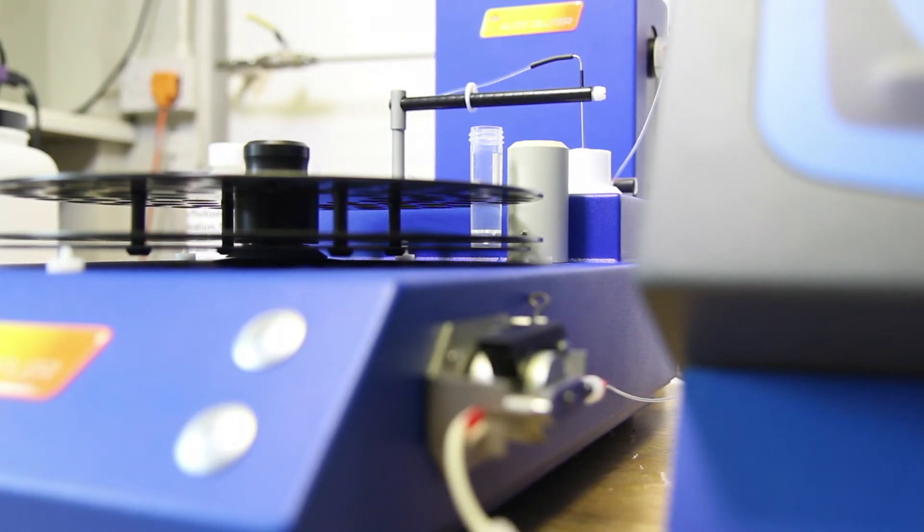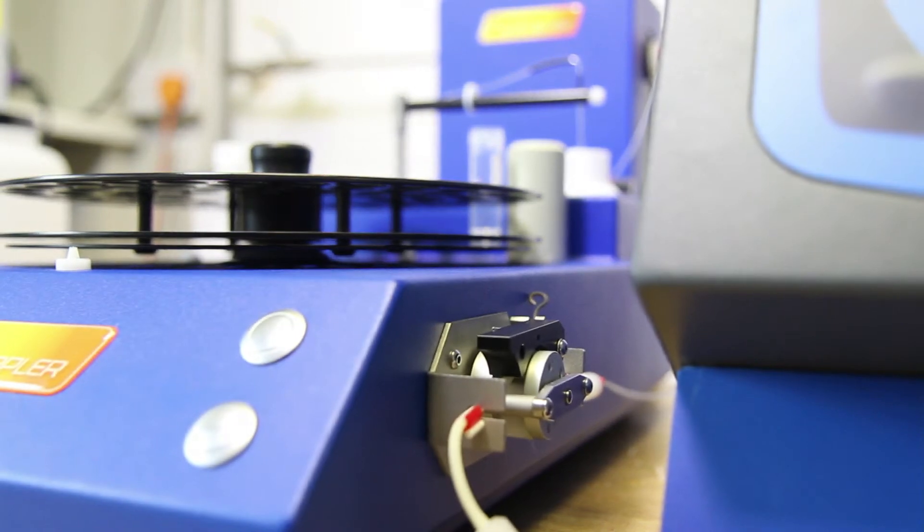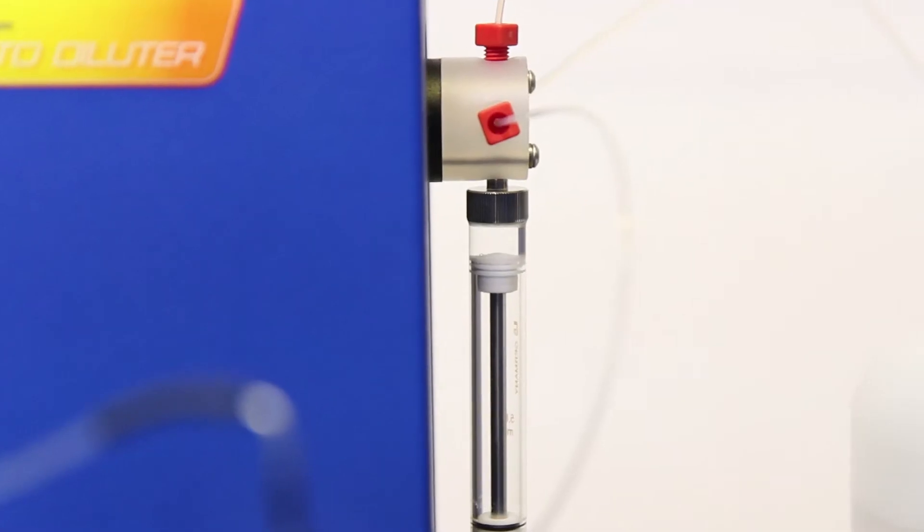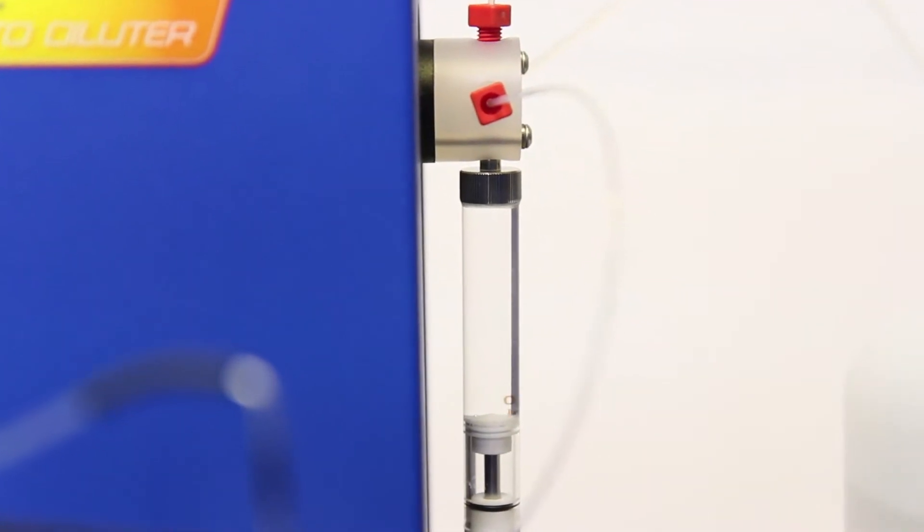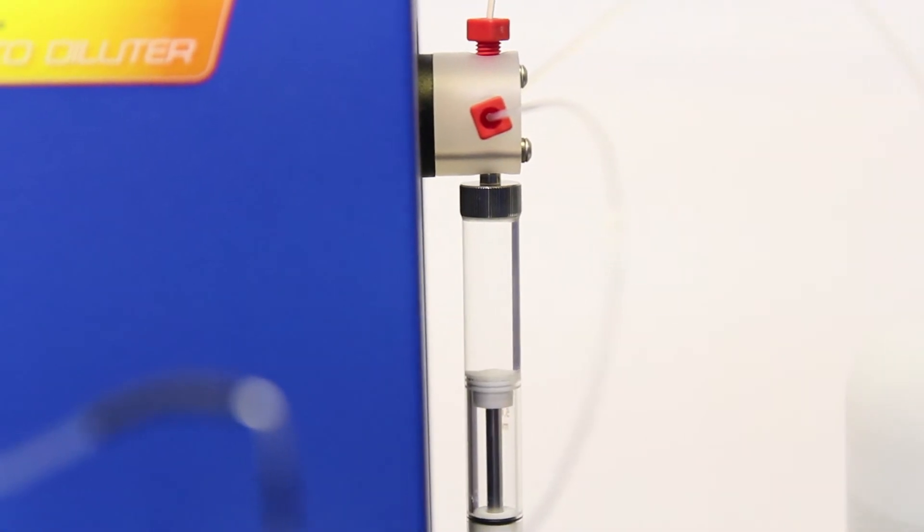Subsequent regular single point calibration corrections can then be performed to keep the instrument at peak accuracy. Different calibration solutions are provided for serum and urine testing.